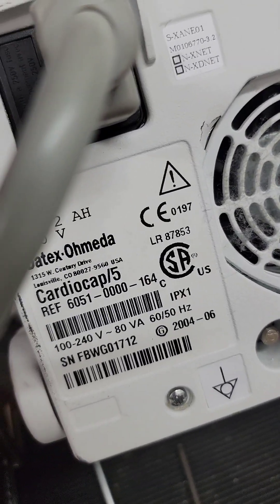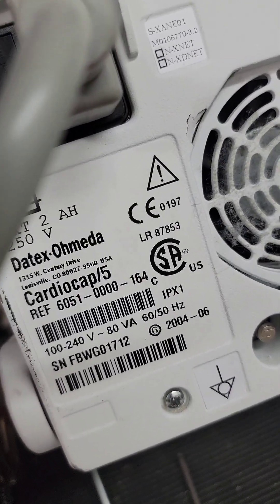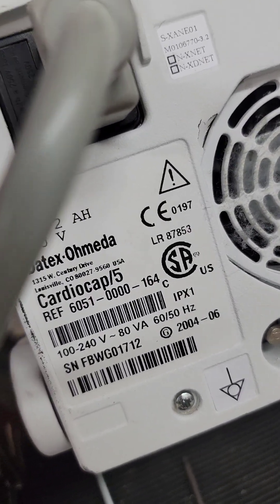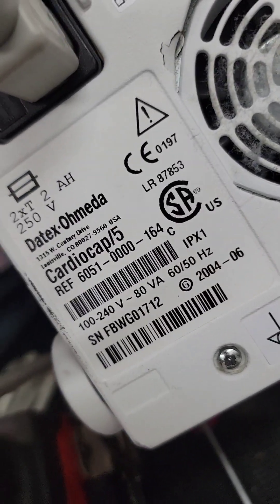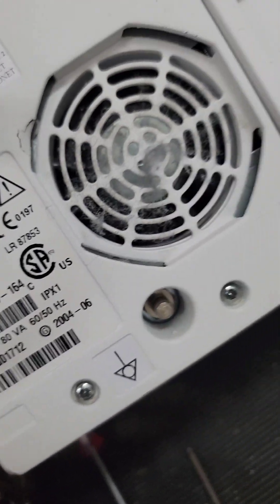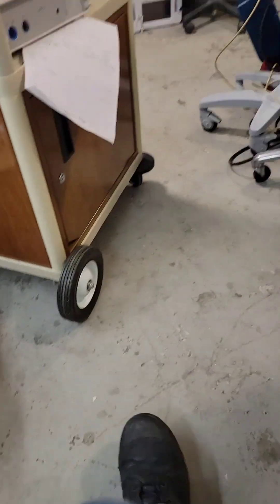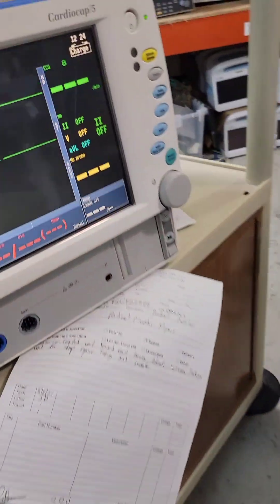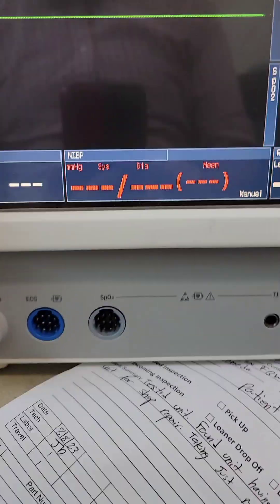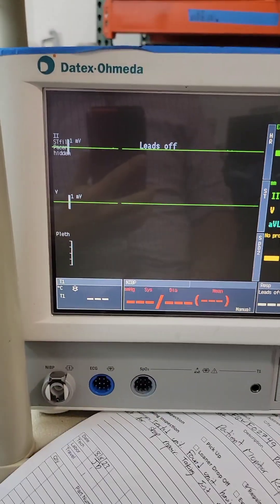See the back of the unit — I don't see any information here that helps me in any way. So let's show you how to get into service mode and check these potential options and change configuration.